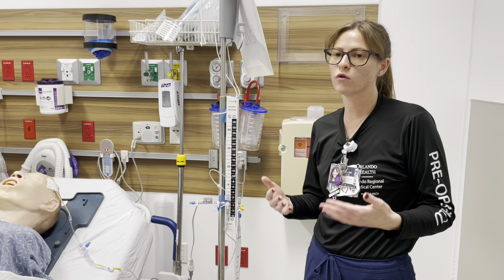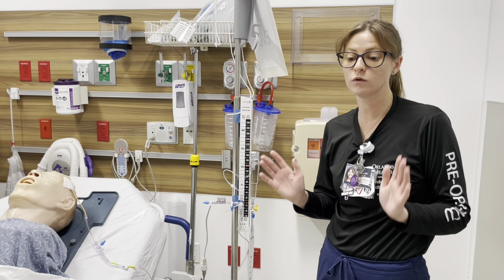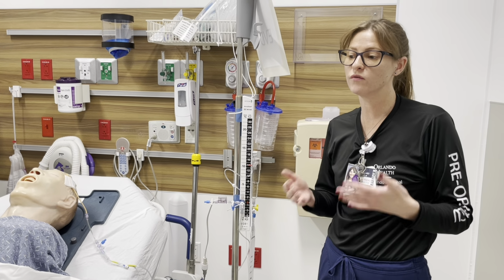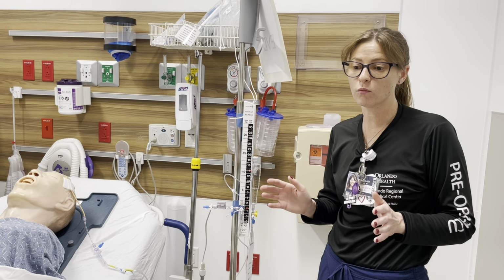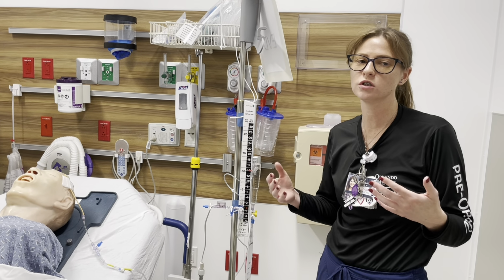So if it says 0 or negative for maybe the first hour or so, don't be too nervous. Call neurosurgery and let them know, because of course they should know. But if you don't see a waveform or you see a 0 or a negative number, that can be normal. If you see anything greater than 15, you really should be wondering, okay, why are we creeping up so high? Are my waveforms appropriate? Those kinds of things.